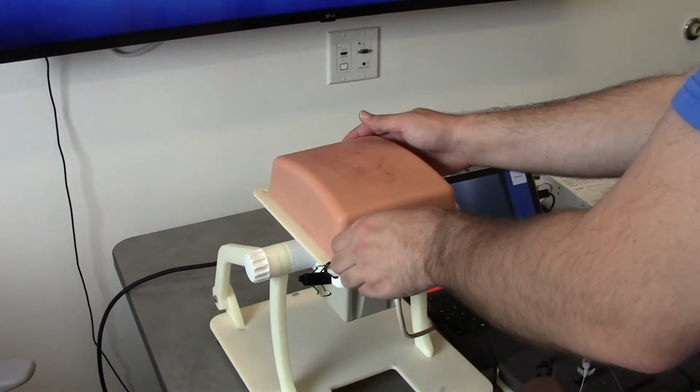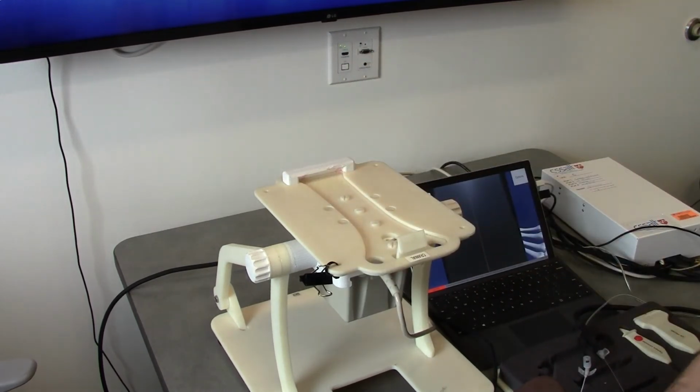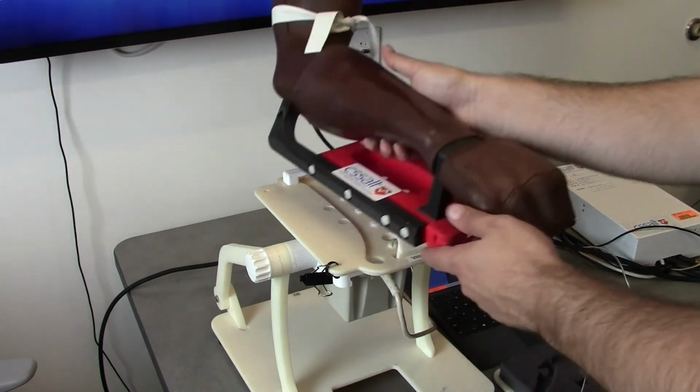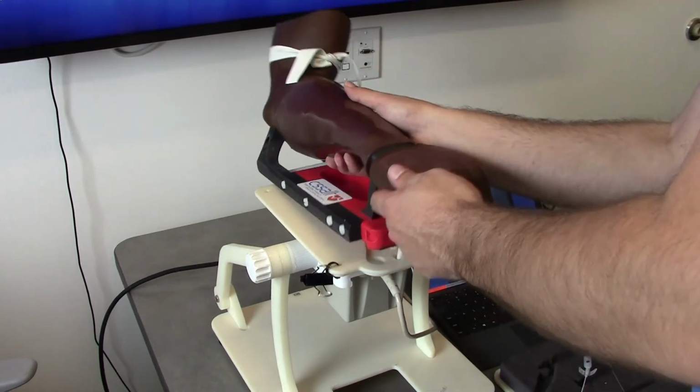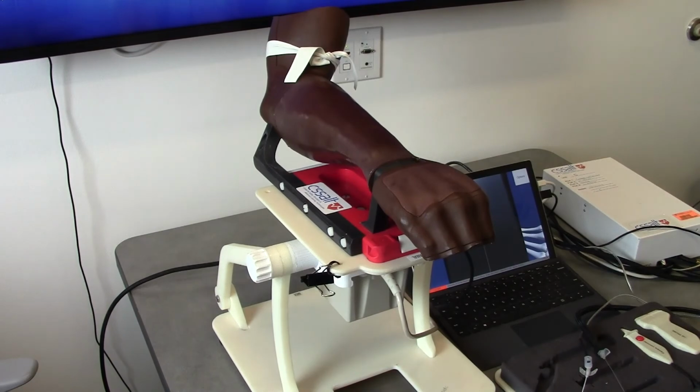The anatomical block is made to mate with the SMARTS platform. The simulation shares the same components with other SMARTS-compliant modular mixed reality simulators. In other words, the peripheral IV simulator can be a central venous access simulator in seconds, and vice versa.